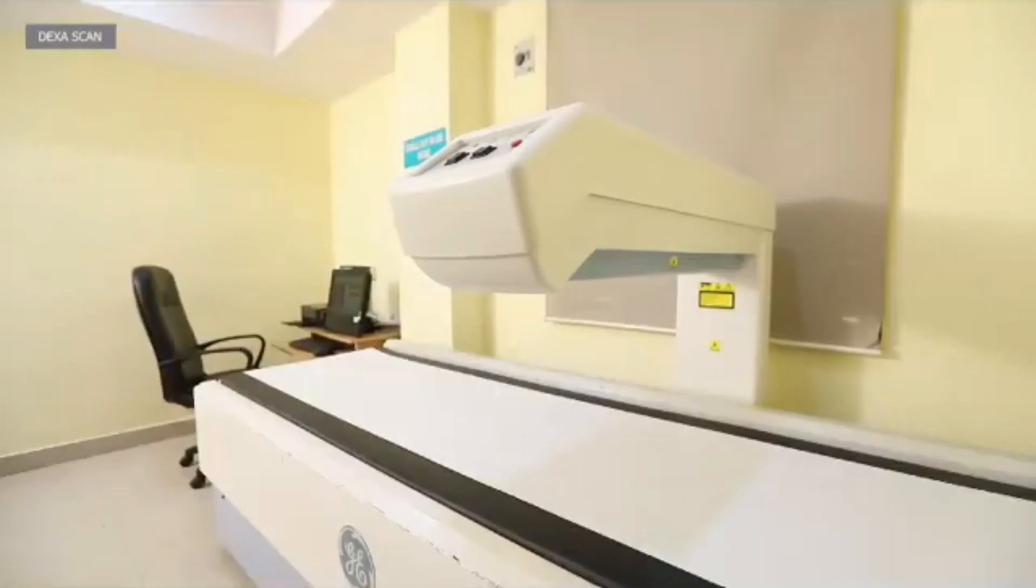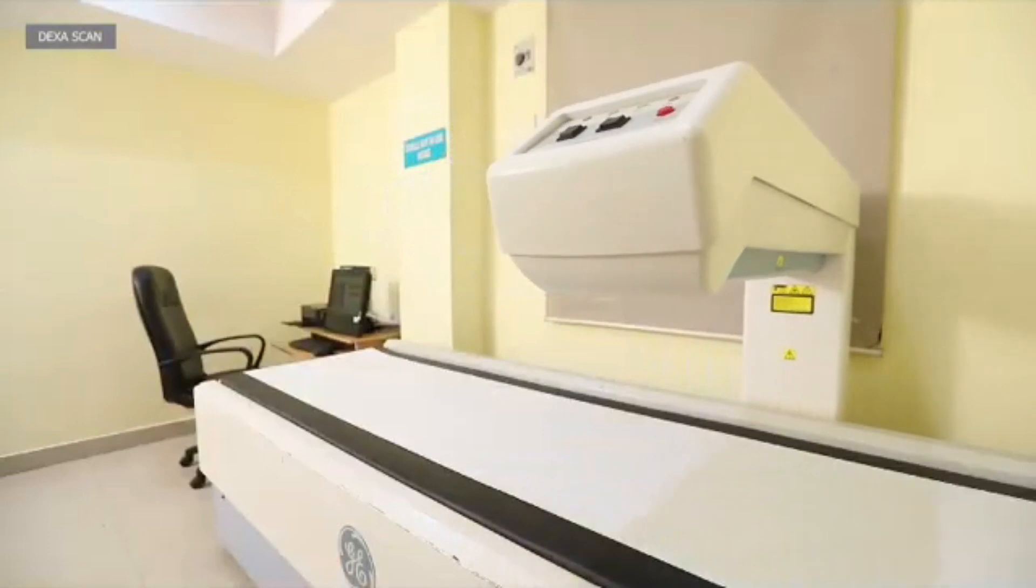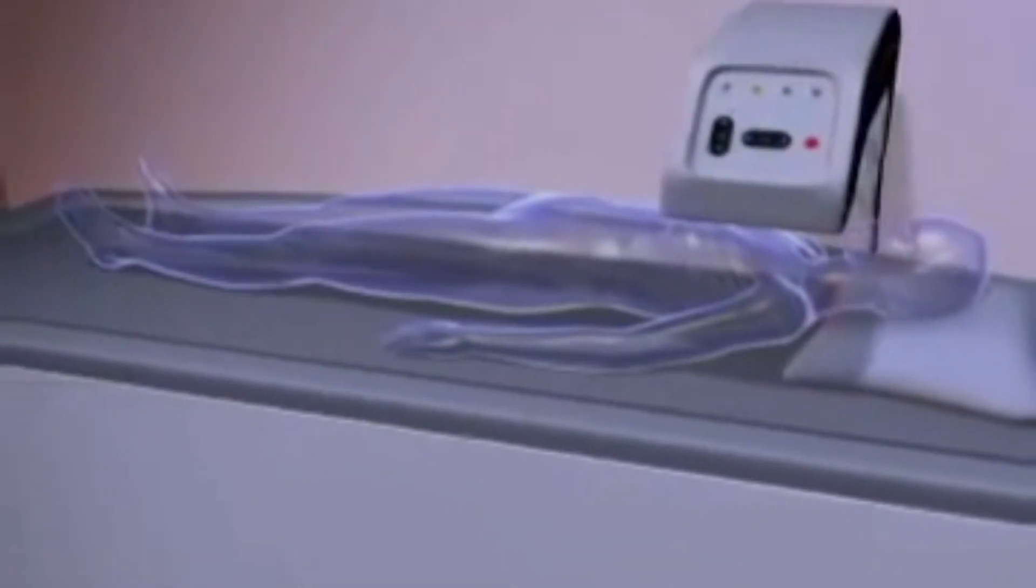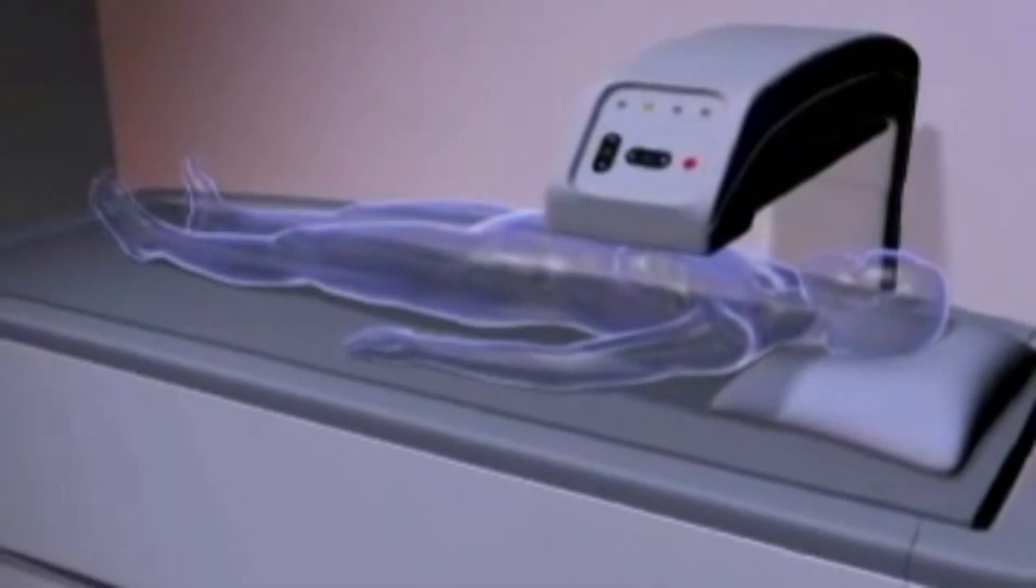The genius of their engineering fostered the use of the concept of dual-energy x-ray delivery methods to better discriminate between soft tissues from bone and thereby enhance the direct bone edge measurement.